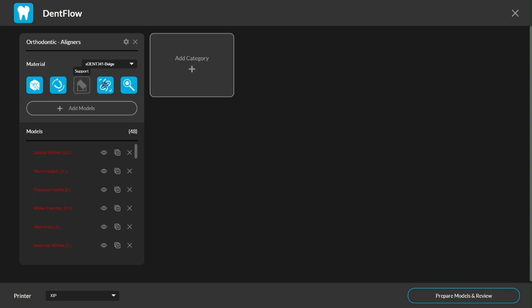And then finally, nest them tightly across several builds. The last toggle lets me decide whether or not I want to review the results and make any final adjustments.